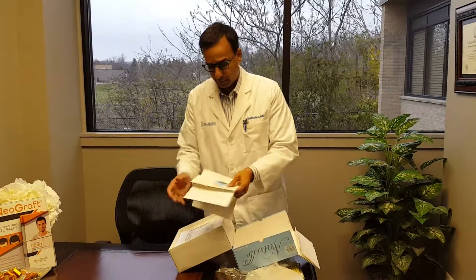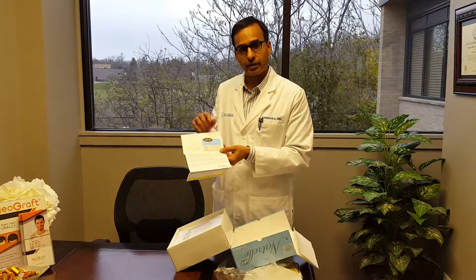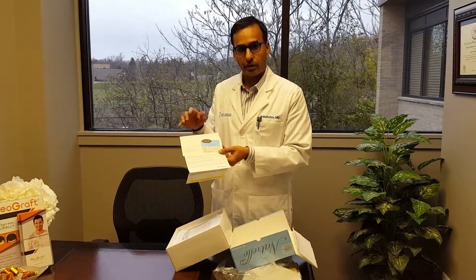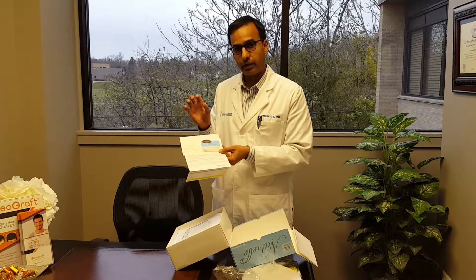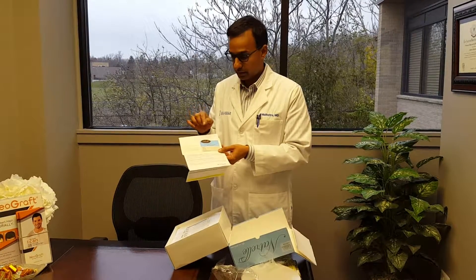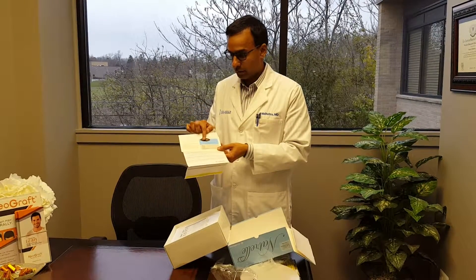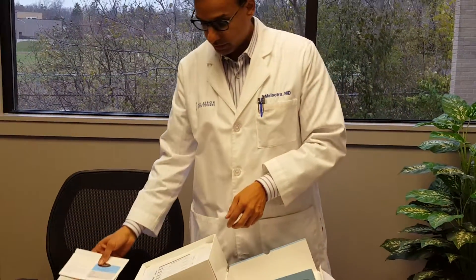There's all sorts of paperwork with it. We hear from a lot of patients that they had a breast augmentation and weren't given a card — this card is actually a device tracking card. Each implant has a serial number which we keep track of and send to the company. When you leave, you should have a card like this showing the numbers on both implants, and it also helps with your warranty information.